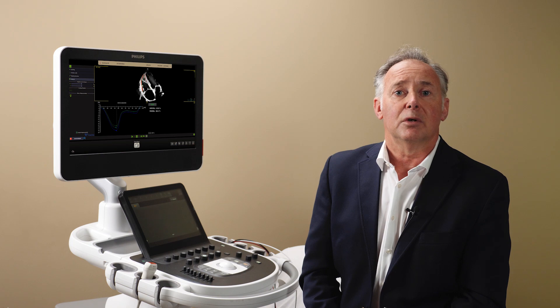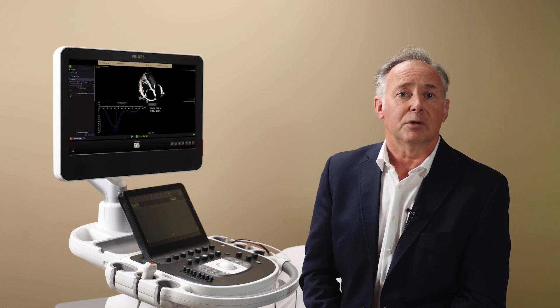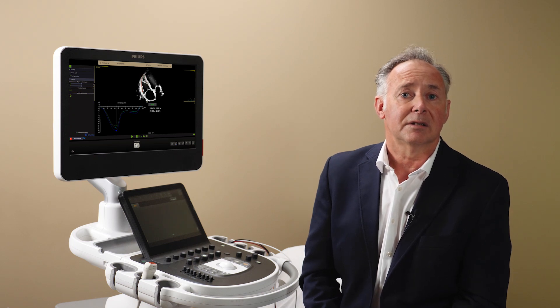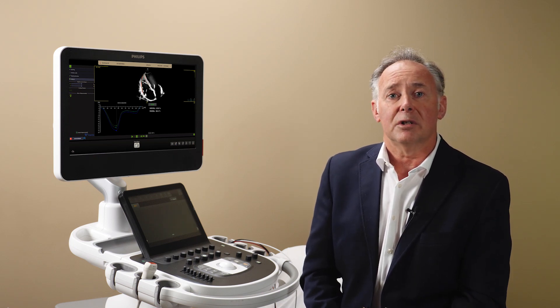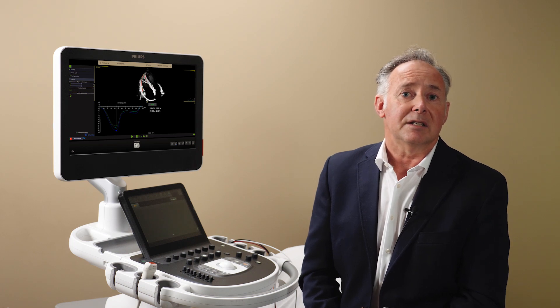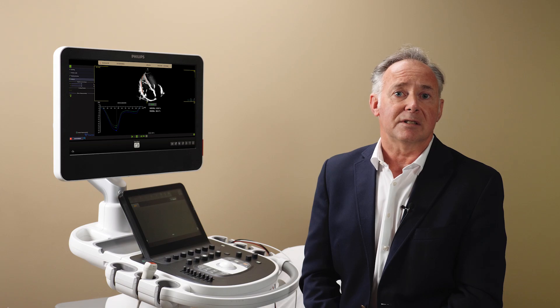Right ventricle longitudinal strain can be a good indicator for right ventricle dysfunction, especially at early stages. Right ventricle systolic dysfunction can be identified as an independent prognostic marker for many cardiovascular diseases.